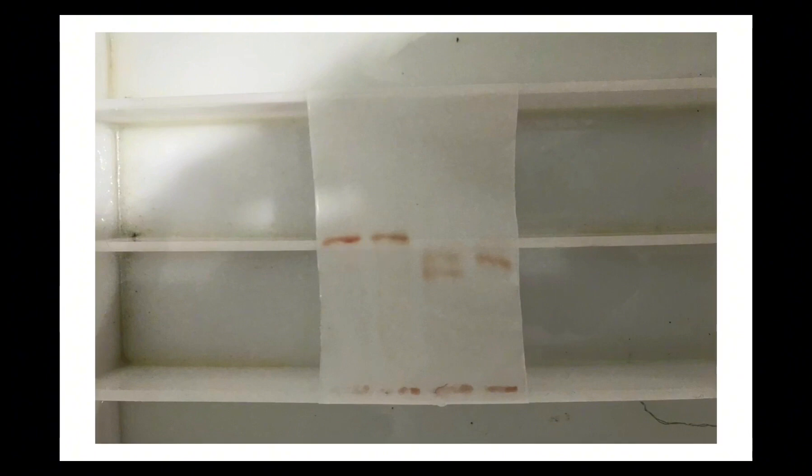So this is how the test is done and how the result is interpreted. Now listen, hemoglobin is a protein in your red blood cells that carries oxygen from your lungs to the rest of your body. There are several different types of hemoglobin. Hemoglobin electrophoresis is a test that measures the different types of hemoglobin in your blood. It also looks for abnormal types of hemoglobin.